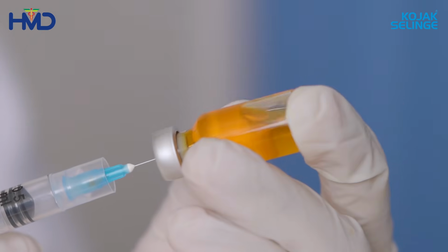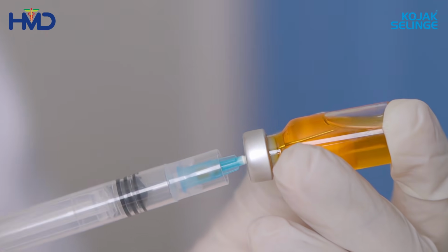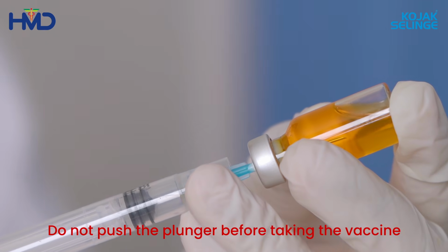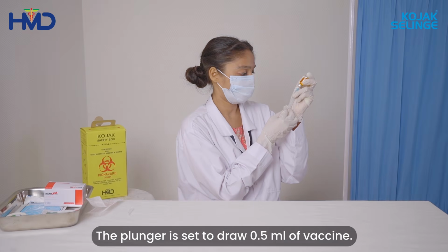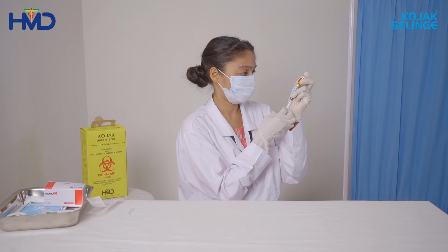Before filling the vaccine, ensure the needle tip is submerged in the liquid or you will fill in the air. Pull back the plunger slowly to draw the necessary dose into the syringe. The plunger is set to draw 0.5 ml of vaccine plus 10% from the vial, preventing vaccine wastage.